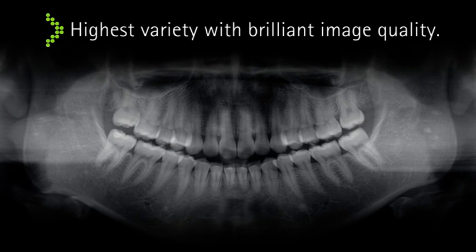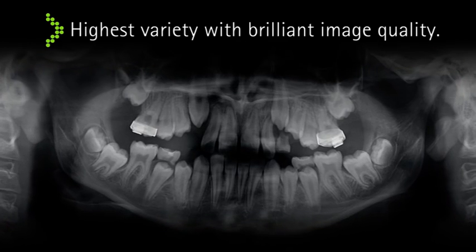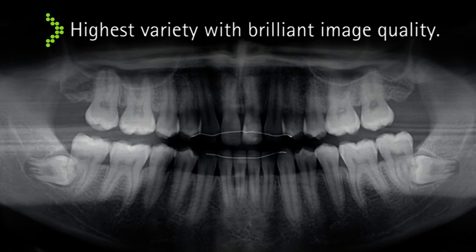Image after image, the Pan Exam Plus presents absolutely model brilliance.